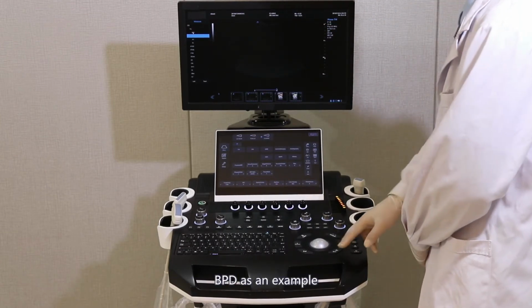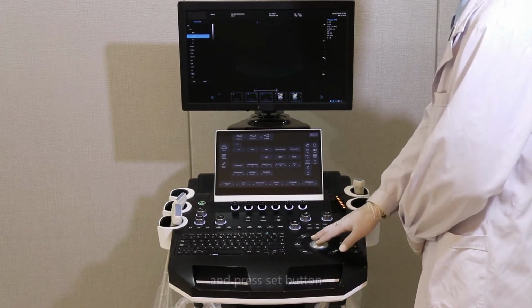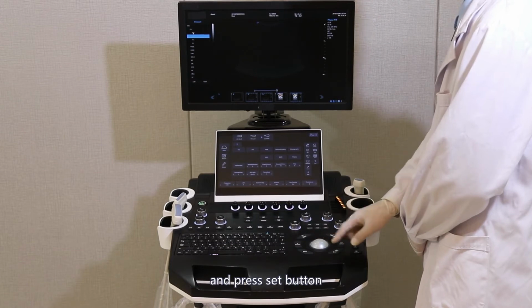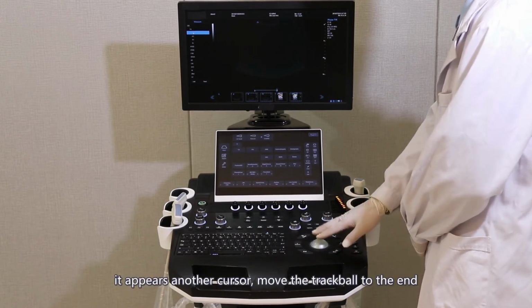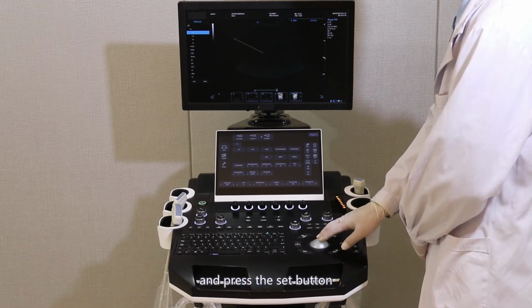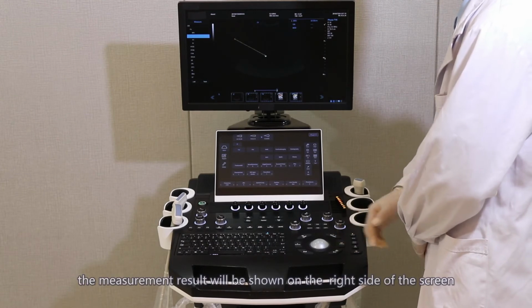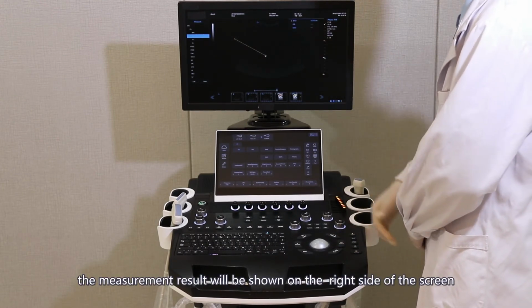Take BPD as an example. Move the cursor to the 0 position and press the Set button. Another cursor appears. Move the trackball to the end and press the Set button. The measurement result will be shown on the right side of the screen.